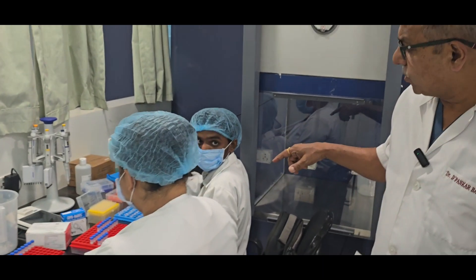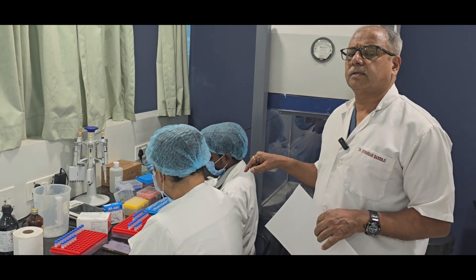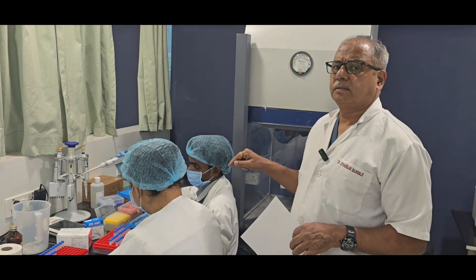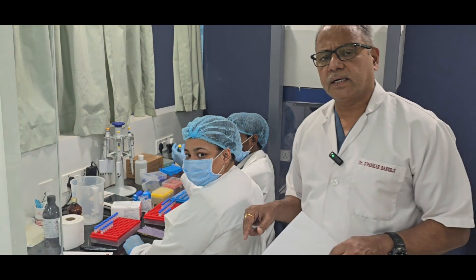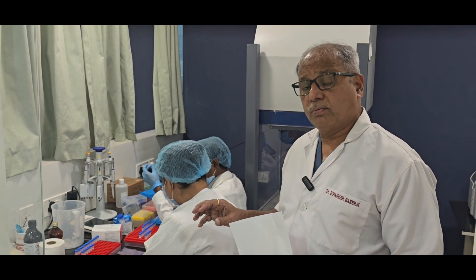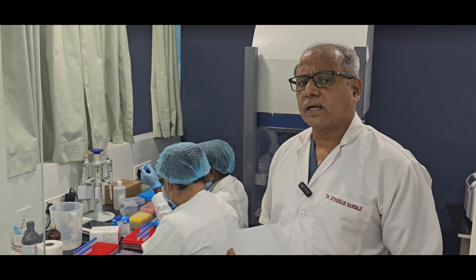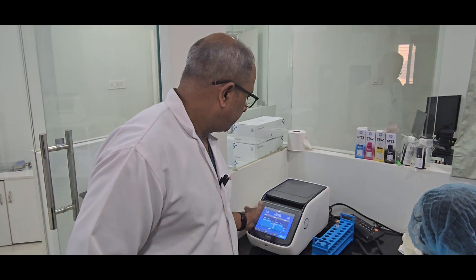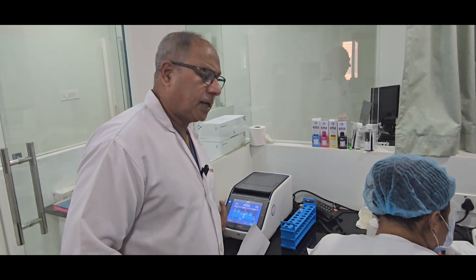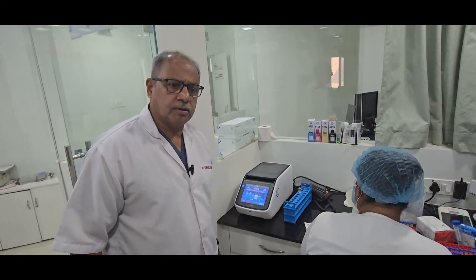He is Mr. Arun, who is the main person behind the machine and he is a trained DNA person who is running the show. She is Ishani and she is a trained molecular person who does Y chromosome microdeletion and sequencing. This is a PCR machine and at present a Y chromosome microdeletion PCR is going on.